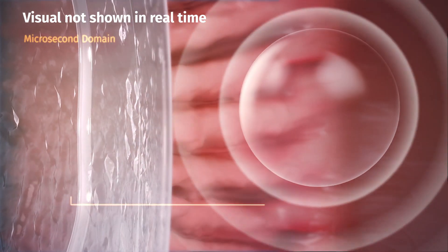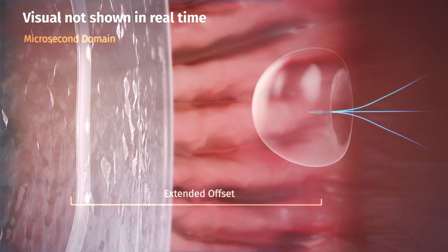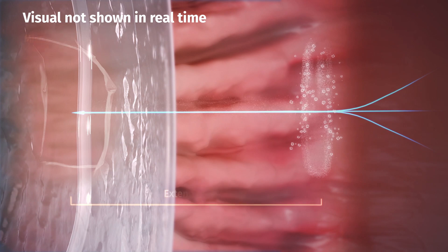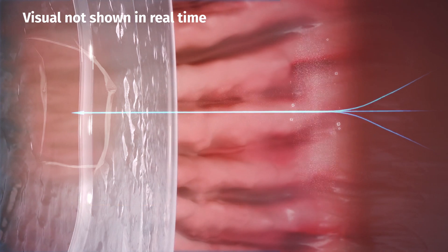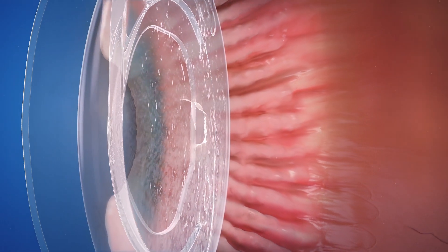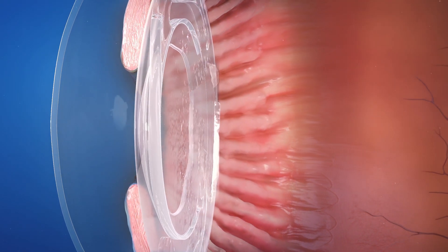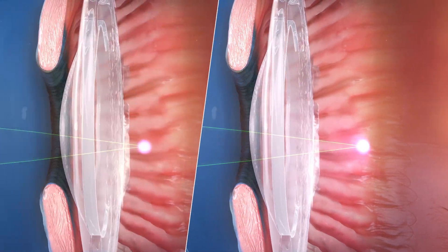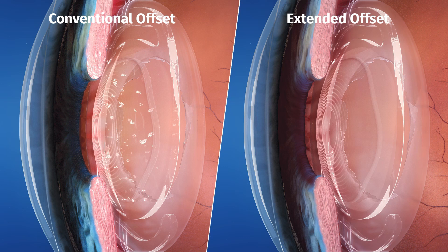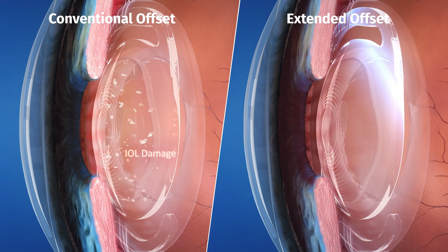With sufficient posterior offset, a collapsing cavitation bubble produces a powerful jet effect, cleanly dissecting tissue with minimal debris. ProCap with up to two millimetres posterior offset eliminates the risk of inadvertent laser damage to IOLs.